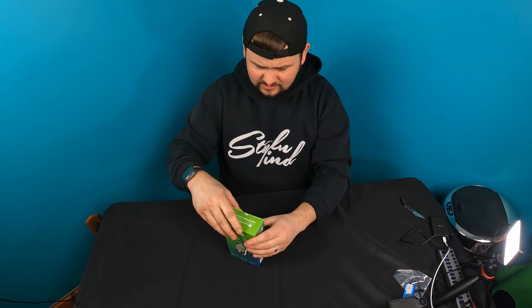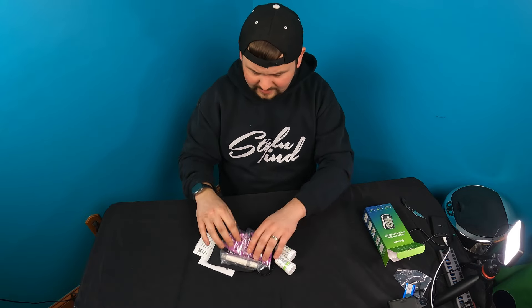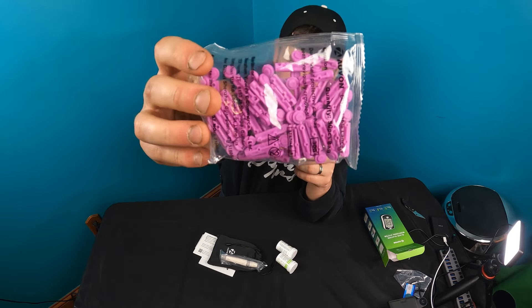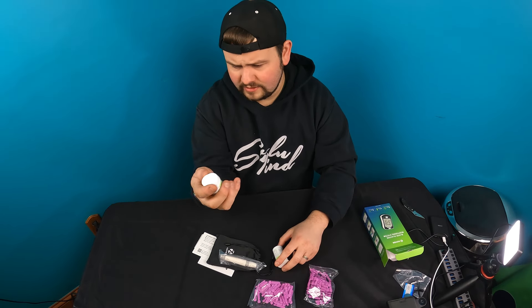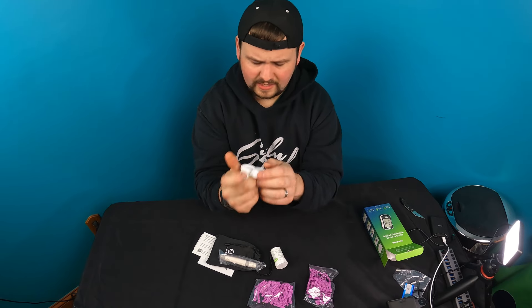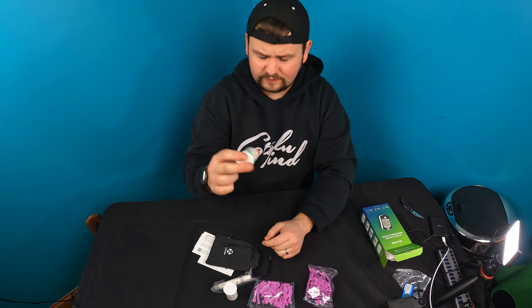Let's open this up and see how everything looks inside the kit. It's a really big kit. All of these are needles — they recommend you only use one needle per use, but there are plenty here. These are the test strips. There are 50 and 50, so you get 100 test strips total.